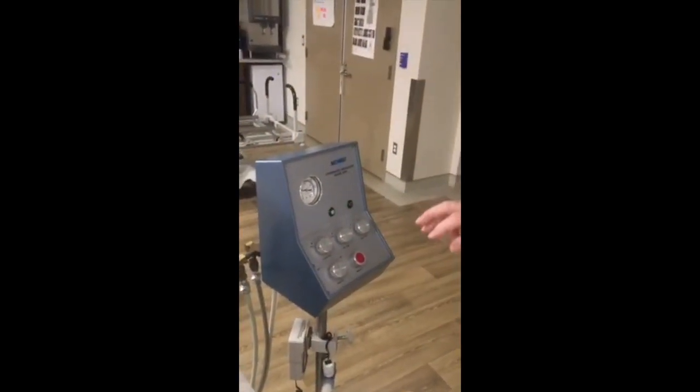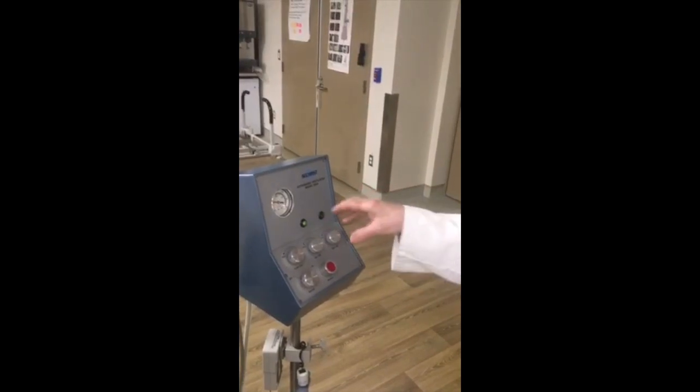So we again looked at the cycle length composed of inspiration and expiration. We chose 1 second inspiration, 2-second expiration, allowing for the importance of inspiration being less than expiration time-wise, preferring something of the order of 1:2 to 1:3 IE ratio. Now, when we change the cycle length, we have to adjust the volume flow knob to allow one to get the 500 mil tidal volume.